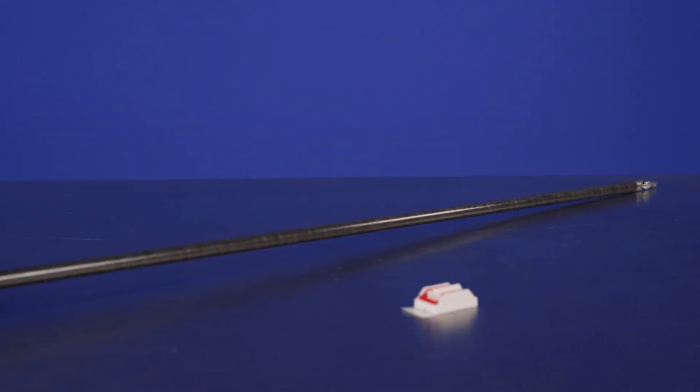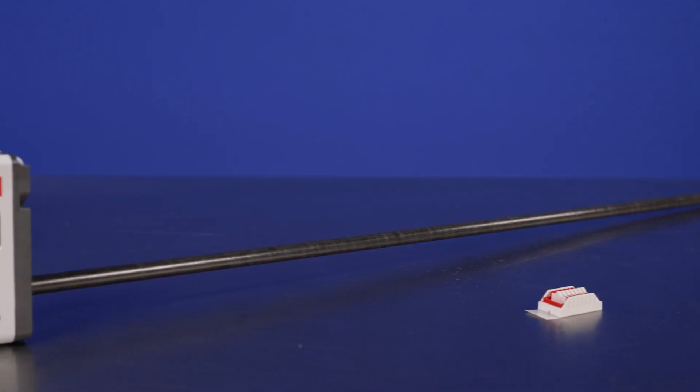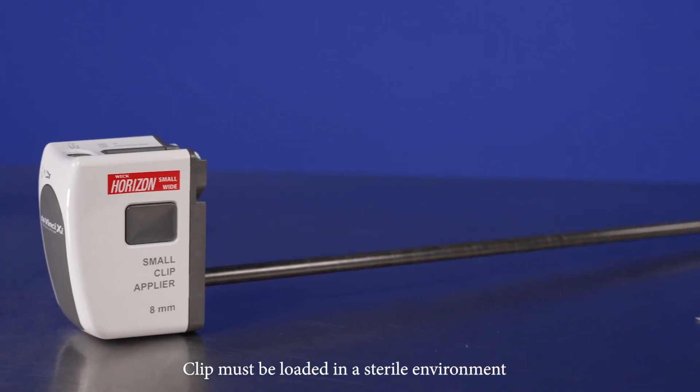To use the DaVinci XI Endo Wrist Small Clip Applier, a sterile OR staff member must load a clip into the instrument.